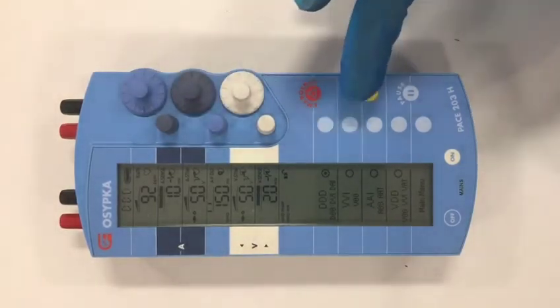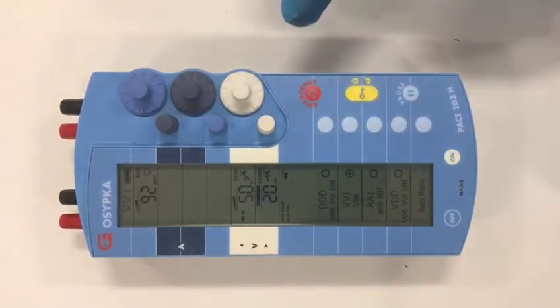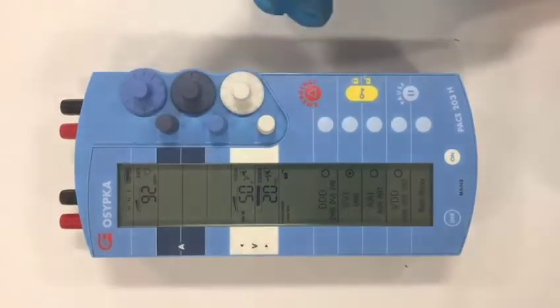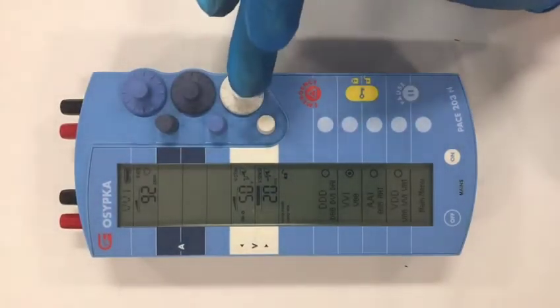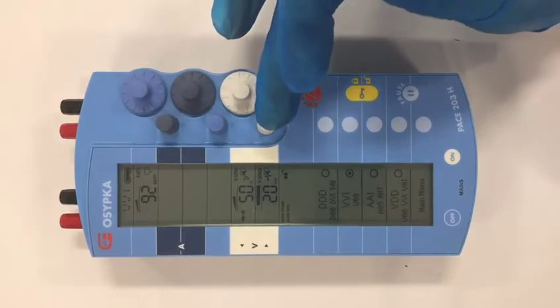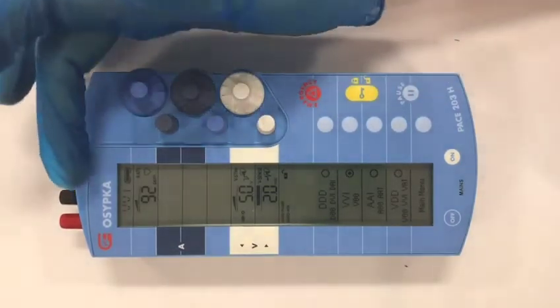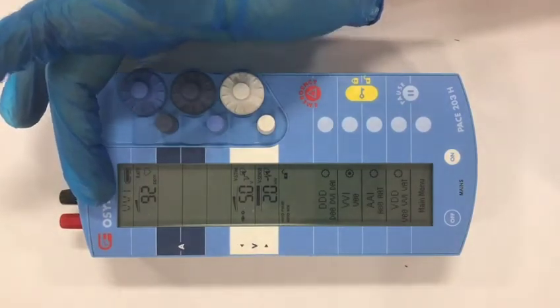If I were to put this into VVI mode, it removes the numbers that are not related to the ventricle, and leaves me with ventricular output, ventricular sensitivity, and the rate. The mode is indicated at the top as VVI.